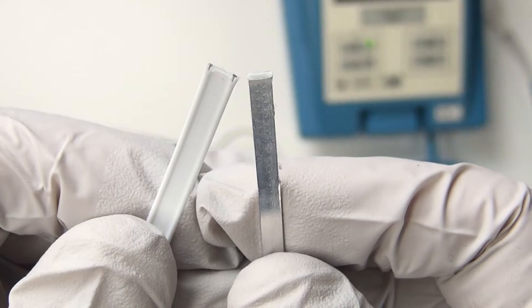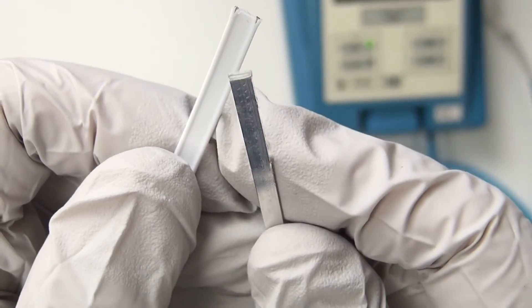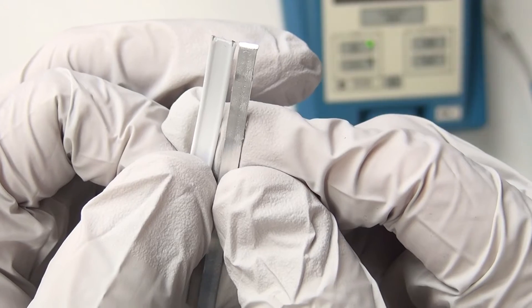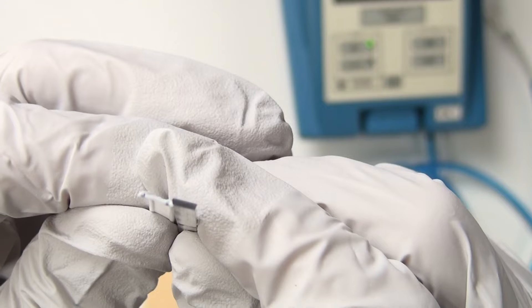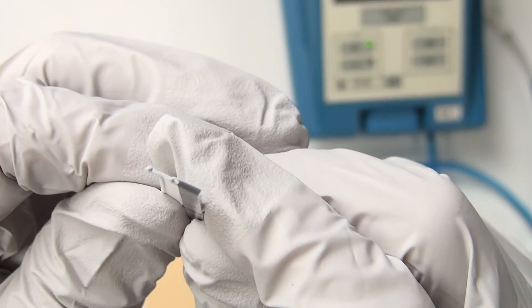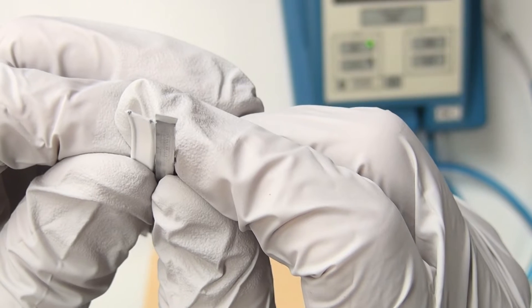Because the nose wire is just not working well, we're going to try out a 3M nose wire in place of the original. The nose wire in the Hard mask is a little twin wire with thin little wires, whereas the 3M nose wire is a solid piece of metal that's much thicker. Think of how many of those little wires you'd have to stack to match this piece of metal — so clearly the Hard mask has a completely inferior nose wire.